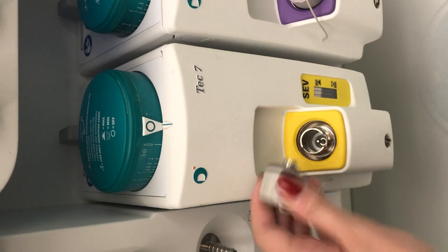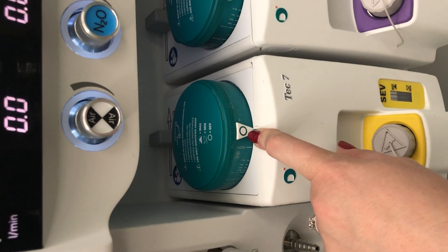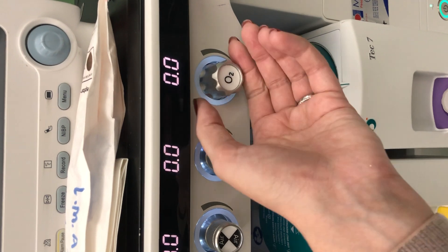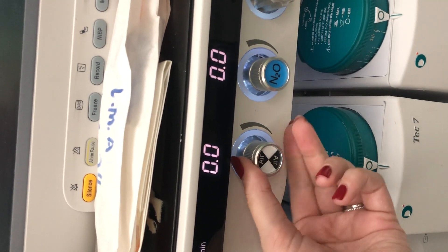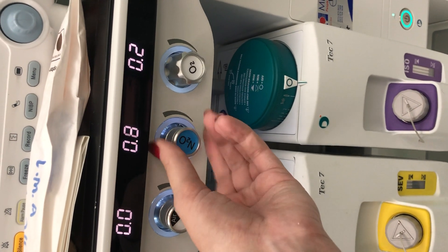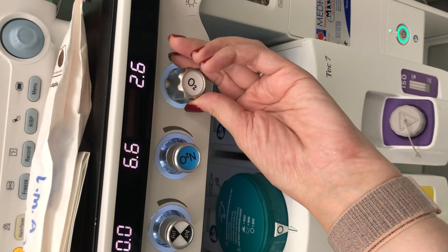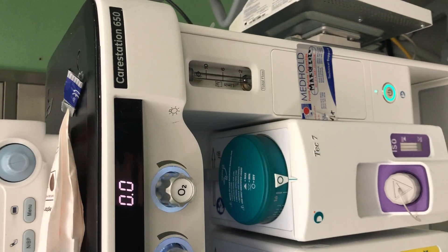The anesthetic agent exists in liquid form in the vaporizer; vapor sits on top of the liquid, and adjusting the percentage controls how much carrier gas passes through to pick up that vapor. The gas control knobs show oxygen — larger, on the right, with a special fluted shape — nitrous oxide in blue, and air in black and white. With nitrous oxide there's an added safety feature: if you open the nitrous oxide, oxygen automatically opens as well, to prevent accidentally giving nitrous oxide alone. Similarly, if you close the oxygen, the nitrous oxide will also start closing as a safety measure.